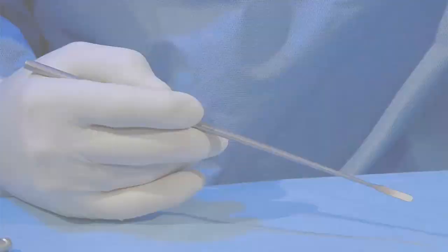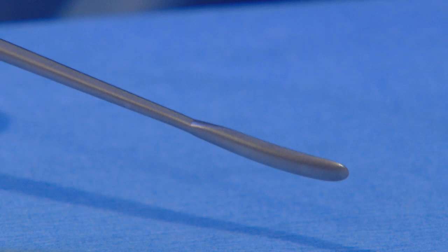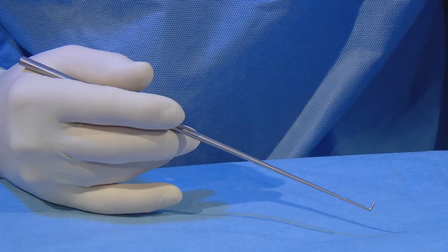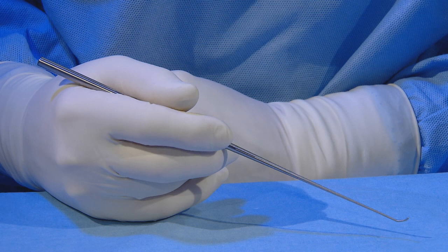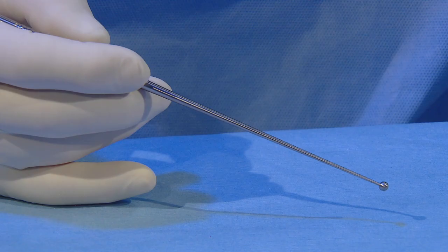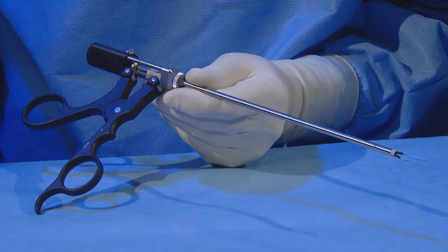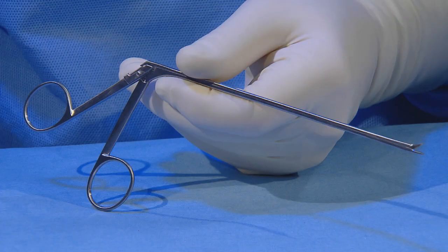The rest are conventional instruments including a spatula, a 90-degree blunt hook, and a biangular hook which makes it easier to remove small fragments from tight spaces. A ball is used to apply wax to stop bone bleeding. A bipolar coagulation forceps is used to stop arterial and occasionally venous bleeding. Alligator scissors can be used to cut fibers that hinder forward movement.